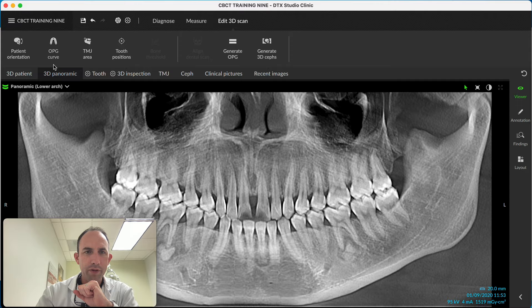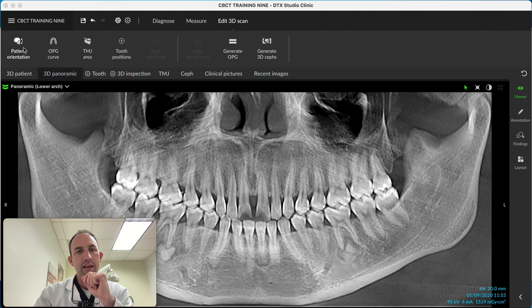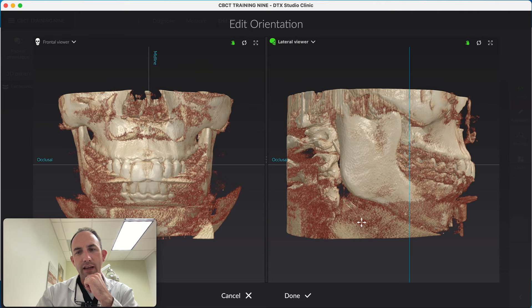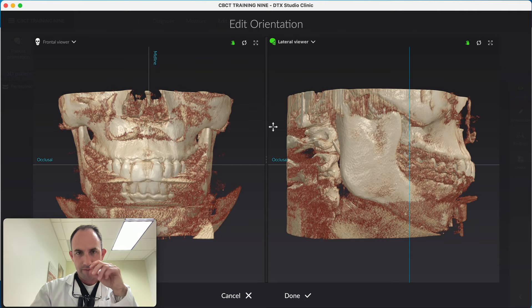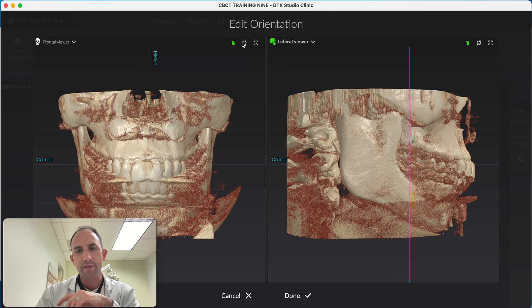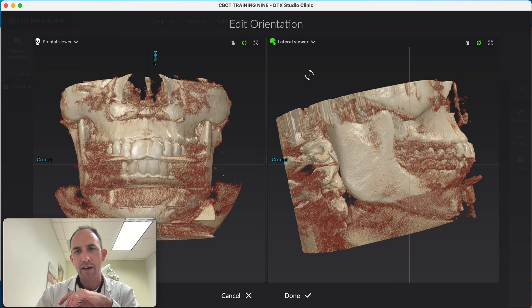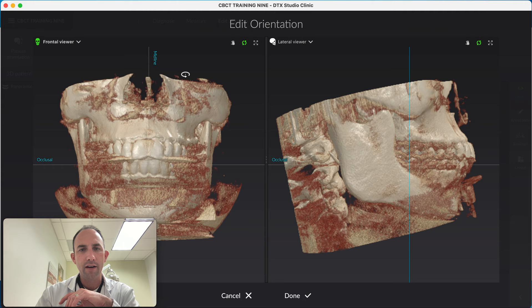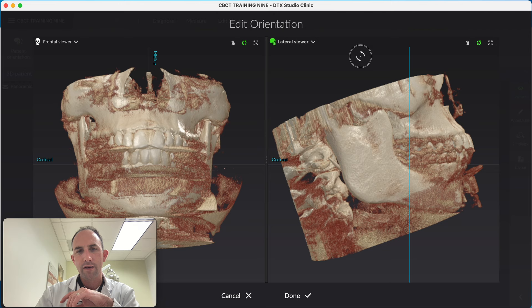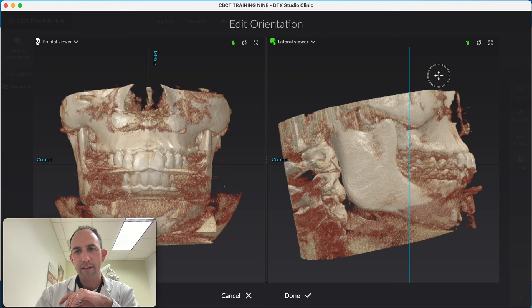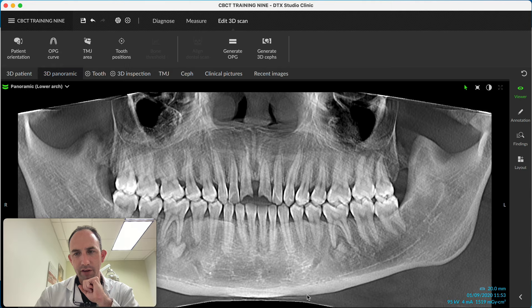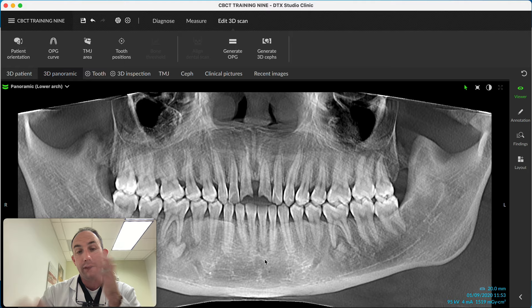One of the first steps is positioning the scan correctly. You'll notice we have a lot of scatter — this could be from the patient moving. You can see the patient's head is down. If you're having trouble, you can adjust by rotating the patient back. Moving the mouse, you can rotate on the axial plane, then up to rotate on the coronal plane. On the other side, axial again, then sagittal. Then you can pan and bring it back down. That adjustment will give us a little better film to work with — you can see it's a little simpler and clearer.